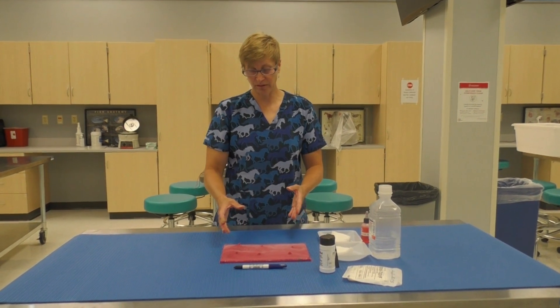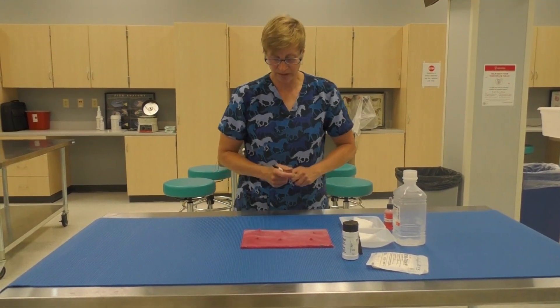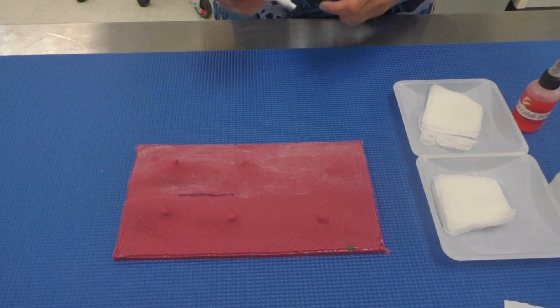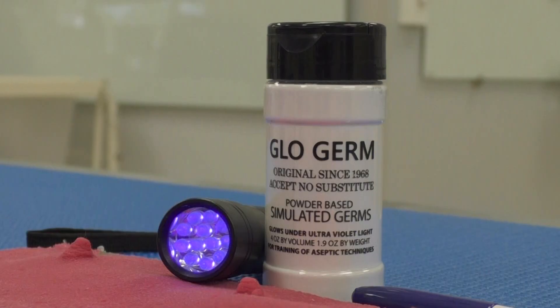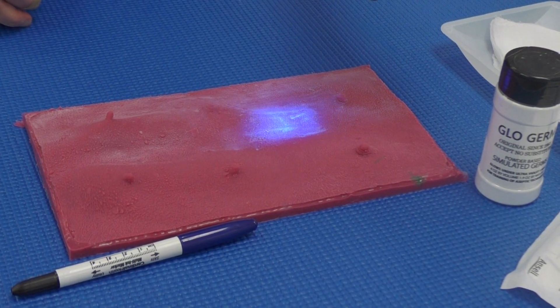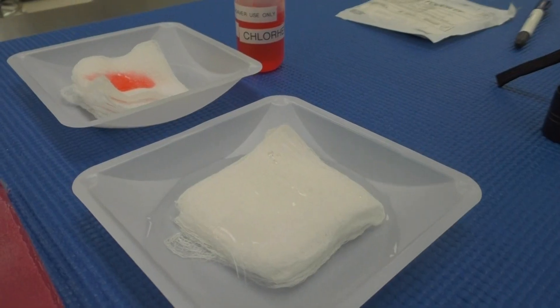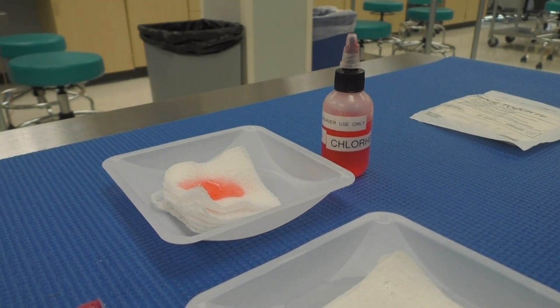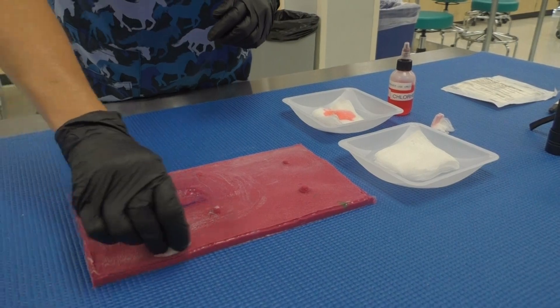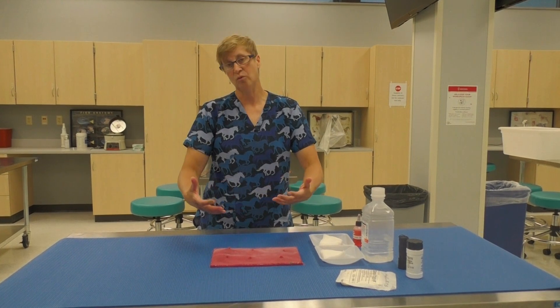This is a replica of a canine abdomen. We use it to have students discuss anatomy and the surgical landmarks they would use. They can draw where their incision would be with a surgical pen. We also add a chemical that glows under a blacklight — applied to the surface — so students can perform a rough prep first and then a sterile prep, including open gloving and draping the model.